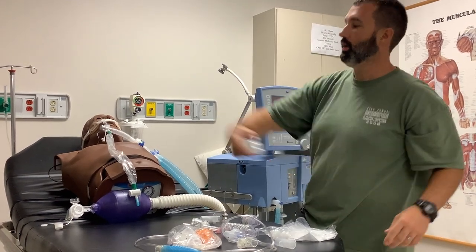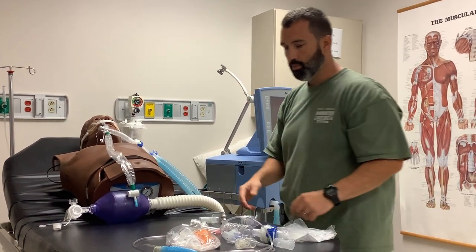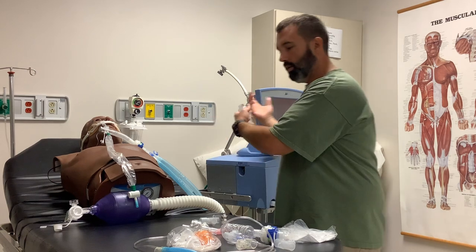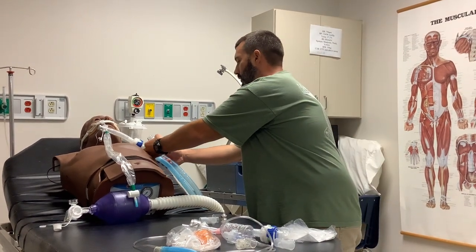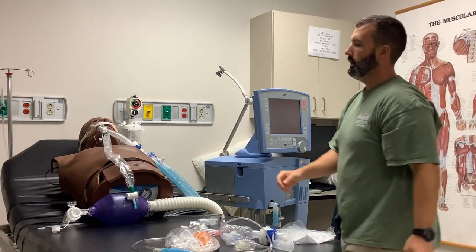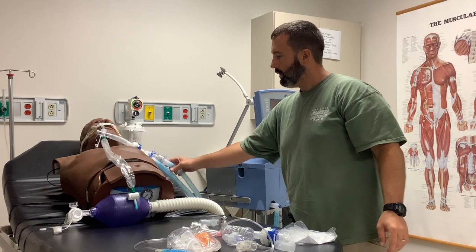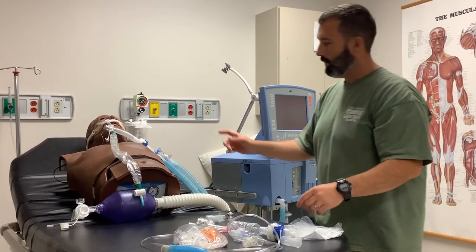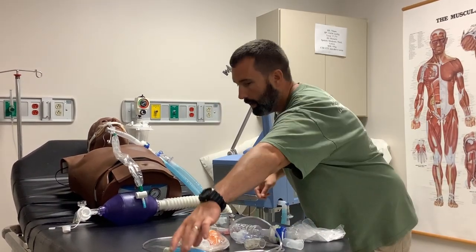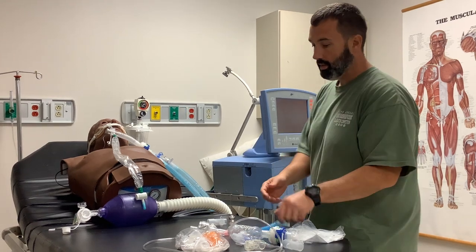Be careful because there's going to be fluid - don't fling it across the room; just put it aside. Put your HME in line, let the ventilator fire a breath. You can put it in standby if you like. Depending upon the Y of your ventilator, you may or may not have enough room. If we had a different Y where the limbs were more parallel rather than diagonal, you might decide to put a piece of corrugated tubing in line to give you a little more wiggle room.